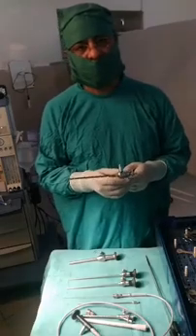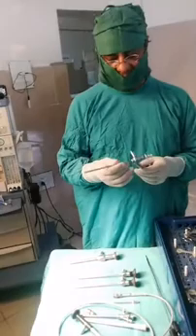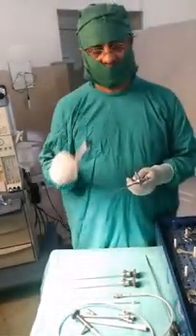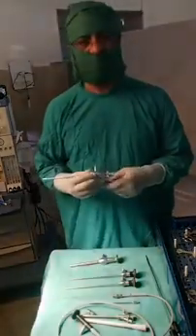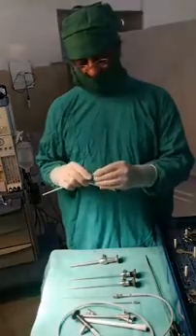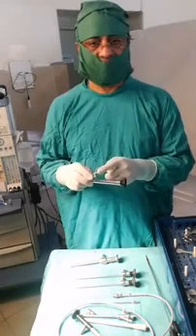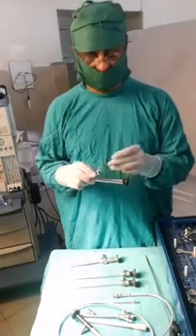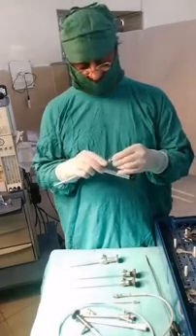Then we have the endoscope for ETV — endoscopic third ventriculostomy. It's a 6mm endoscope. This version is without working channels — just an end-on endoscope. There is also an endoscope that has working channels through which you can use instruments and gadgets such as bipolar and micro scissors or endoscopic scissors.